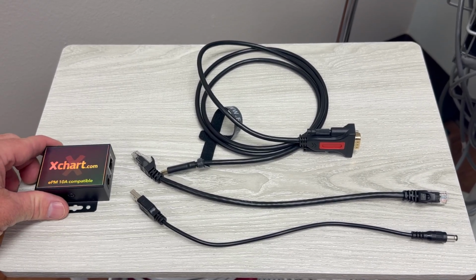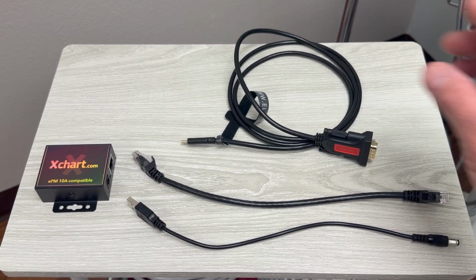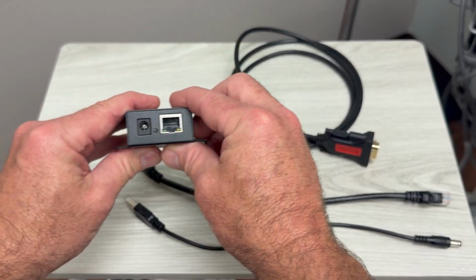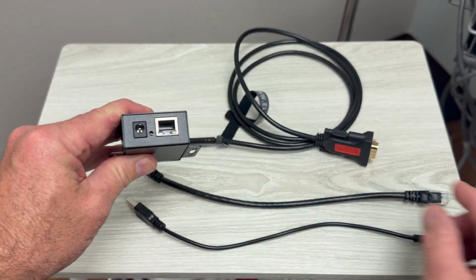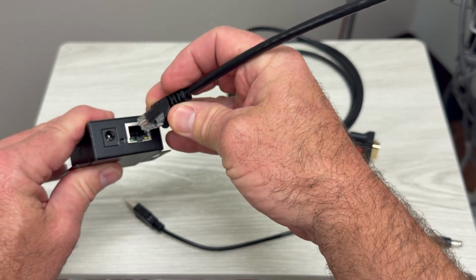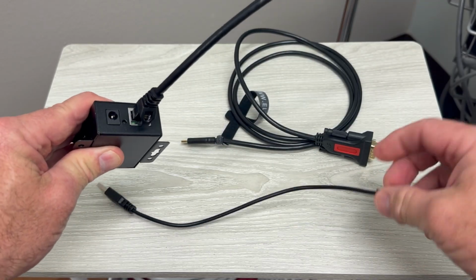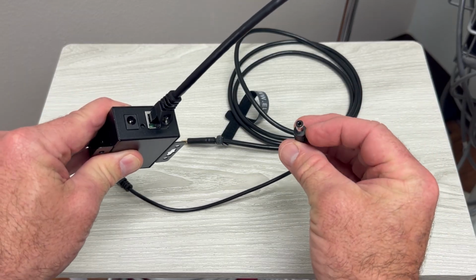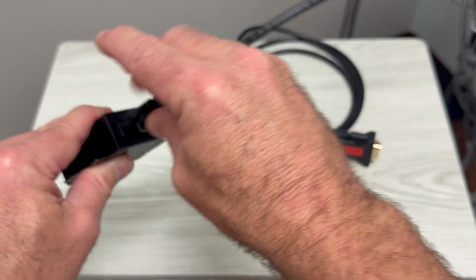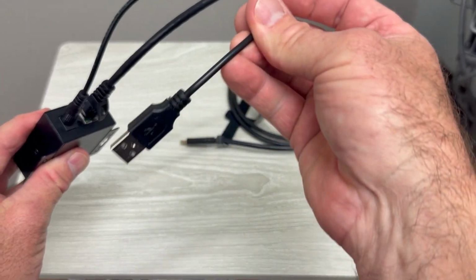We have the little communication device. We have the 3 cables here, and let me show you how they attach. If you look to the back side of the communication device, you'll see 2 receptacles. One of them is so that you can place this telephone connector plug into the back of it. And the other one, you'll see this round, almost like a power cable, that you're going to be plugging in here. It will actually provide power to the unit from your monitor.